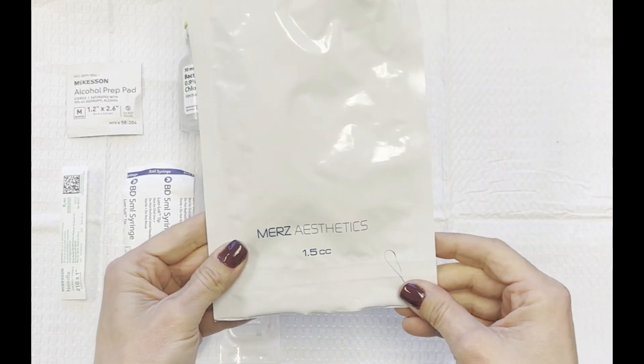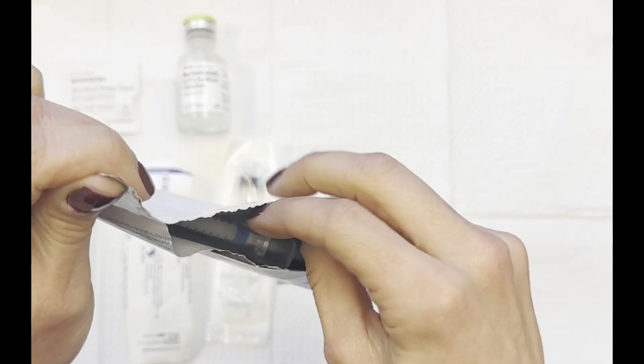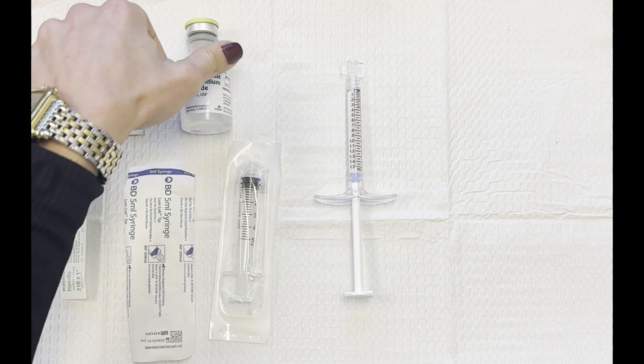Here's a quick video on how I dilute my Radiesse. I take the product out of the packaging, and remember Radiesse comes as a 1.5cc syringe, so lots of extra goodness in that syringe.